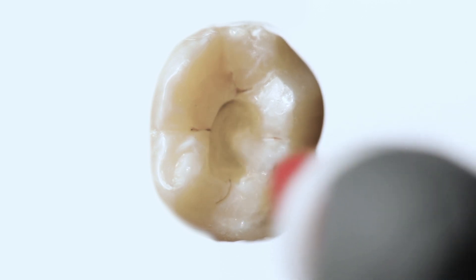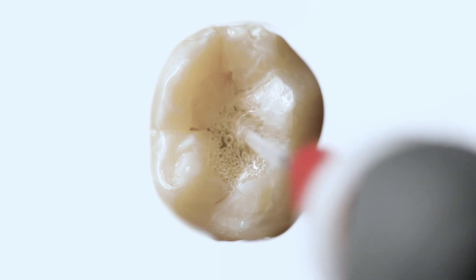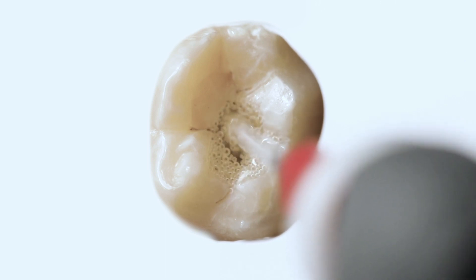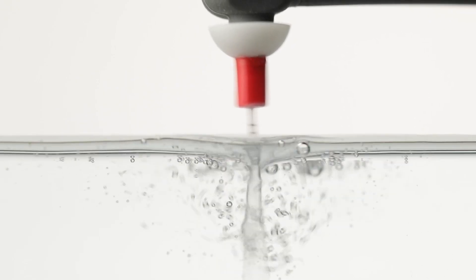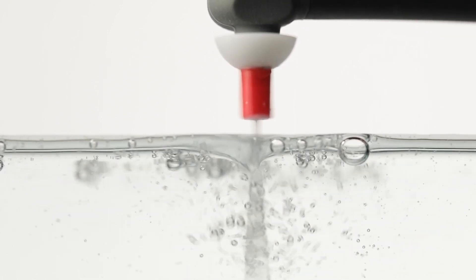When you're looking through a microscope, you can literally see the difference in the cleanliness of the fluids coming out of there — it just loads with debris. If you just think of this as turning on your washing machine, it does so much more in 30 seconds than you can do just sitting there soaking.